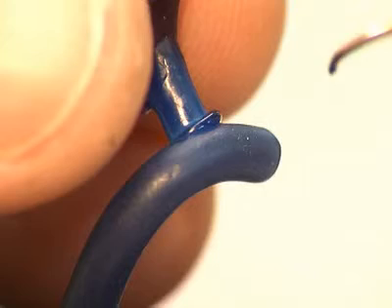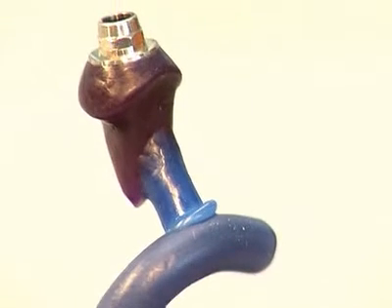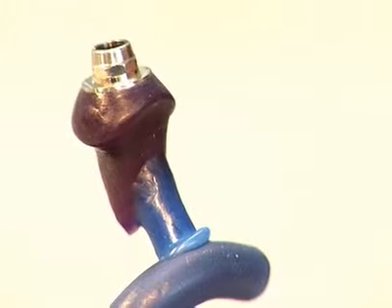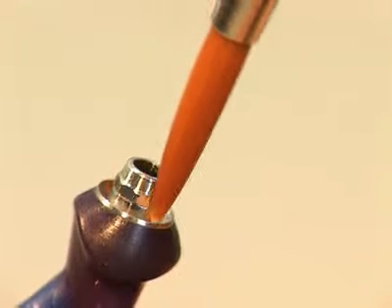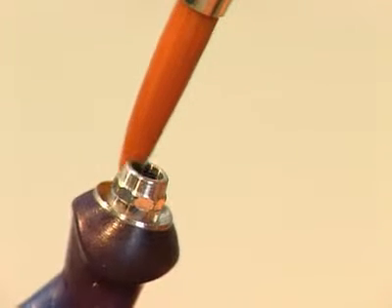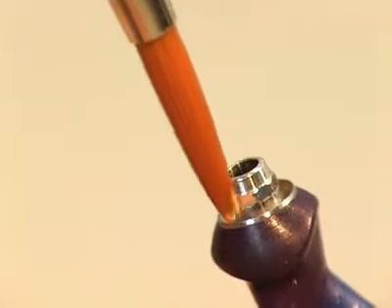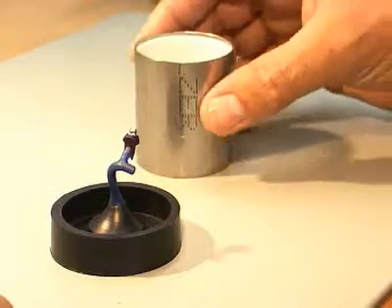Invest the customized abutment in the usual method without the use of wetting agents. In order to avoid overflow of the cast-on alloy on the delicate circular edge and interior of the abutment, it's recommended to thoroughly clean the abutment prior to investment. It's very important that there's no wax on the delicate margin.